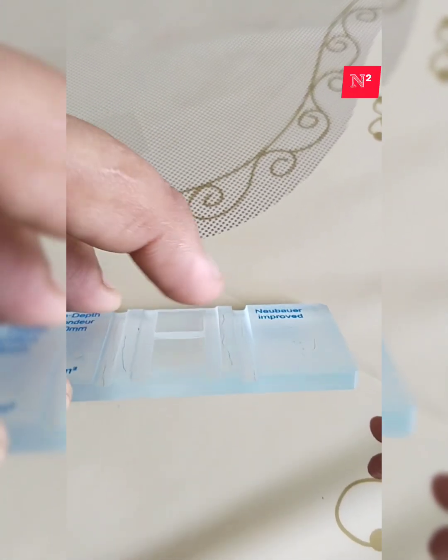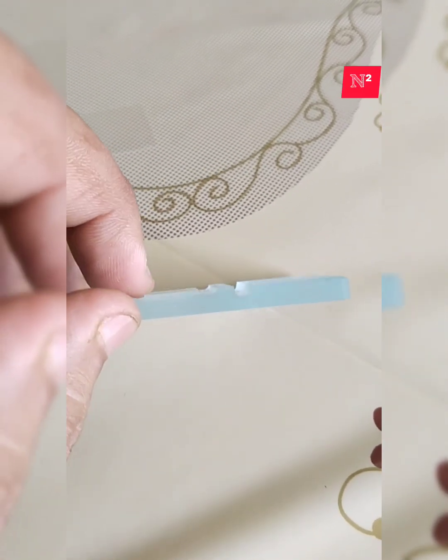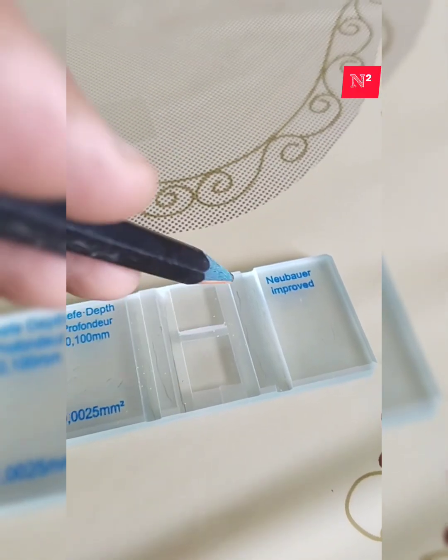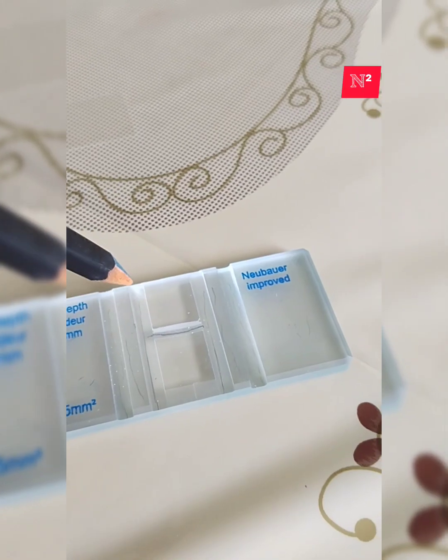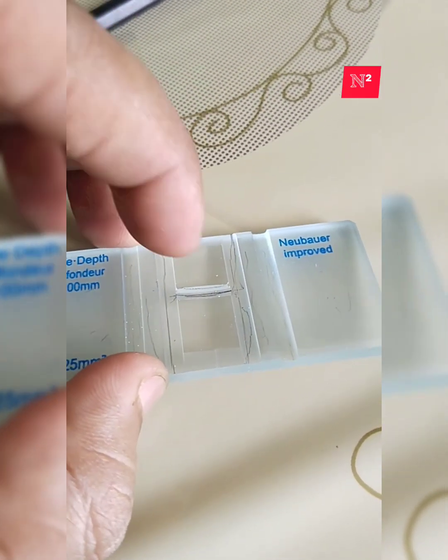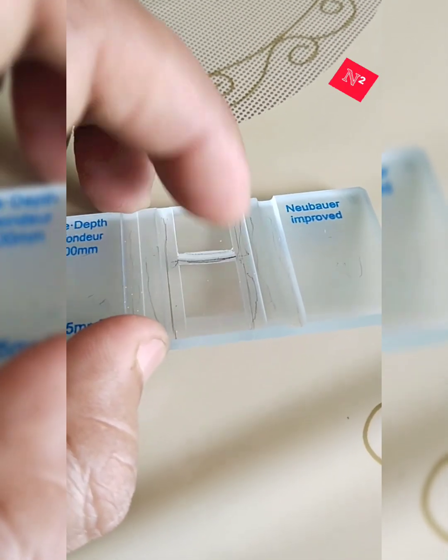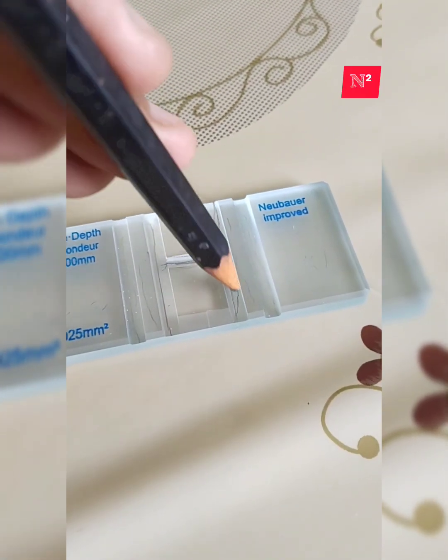These are called moats, and in between the moats we have an H-shaped groove. You can see these two ridges are making a communication in the center and dividing the whole structure into an H shape. So this is called the H-shaped groove or H-shaped gutter, or sometimes the transverse gutter. Sorry, this is the transverse and this is the longitudinal gutter.